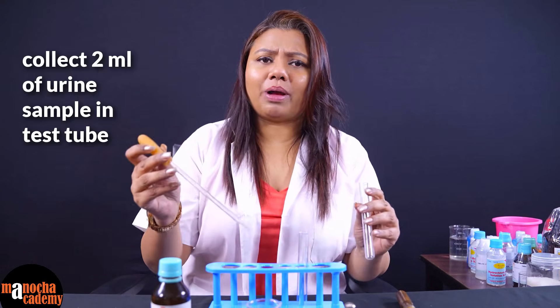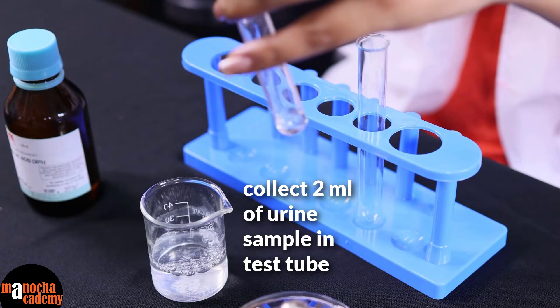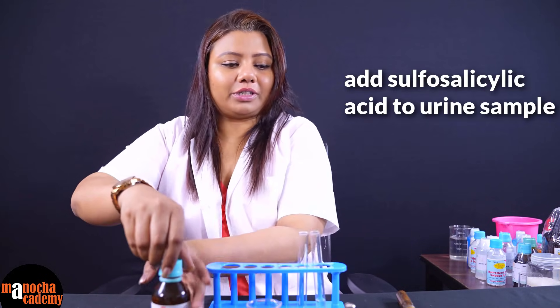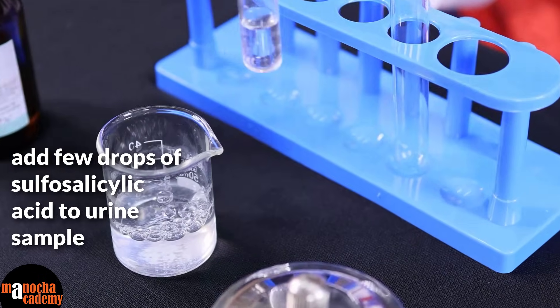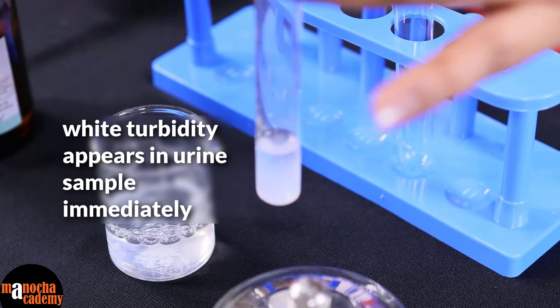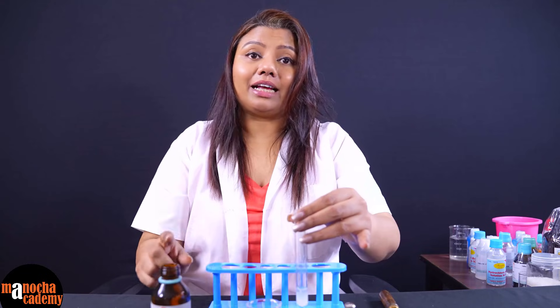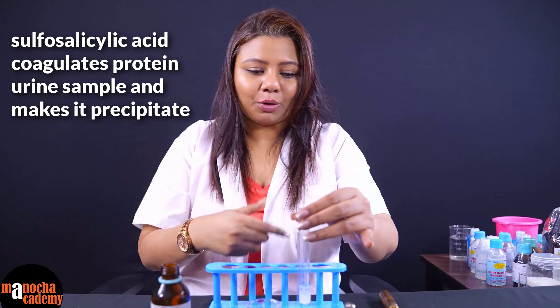We will take about 2 ml of the urine sample in the test tube and add a few drops of sulfosalicylic acid to it. As you can see, immediately a white turbidity appears. Why does this white turbidity appear? Because sulfosalicylic acid, being an acid, coagulates the protein present in urine and makes it precipitate, which gives that turbidity.